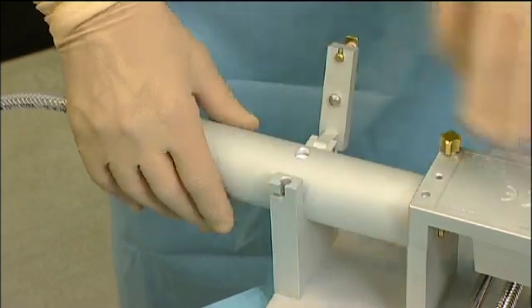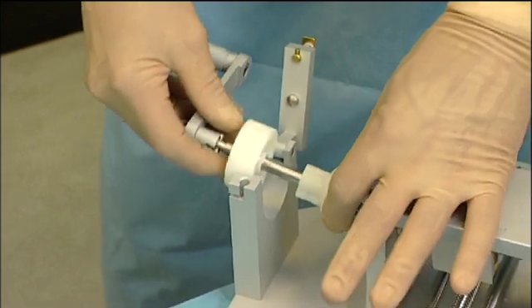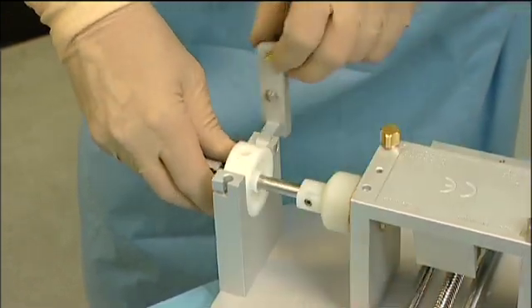In a more simple version of the cutting machine, the drive of the blade's axis is performed manually. The hand drive is easily mounted on the machine and it is exchangeable with the motor drive.